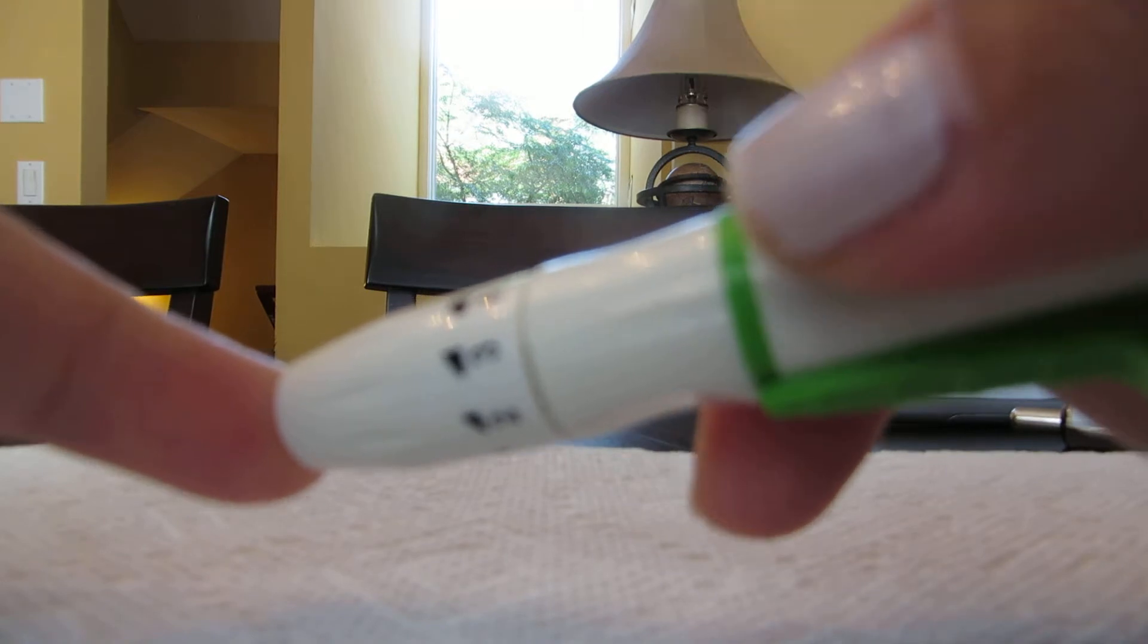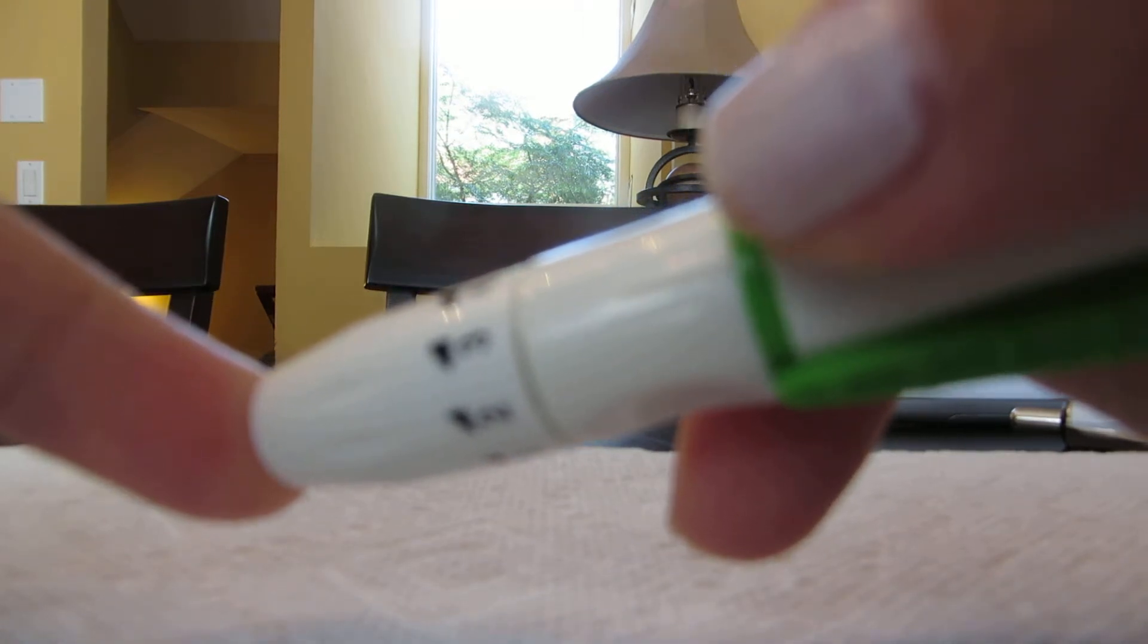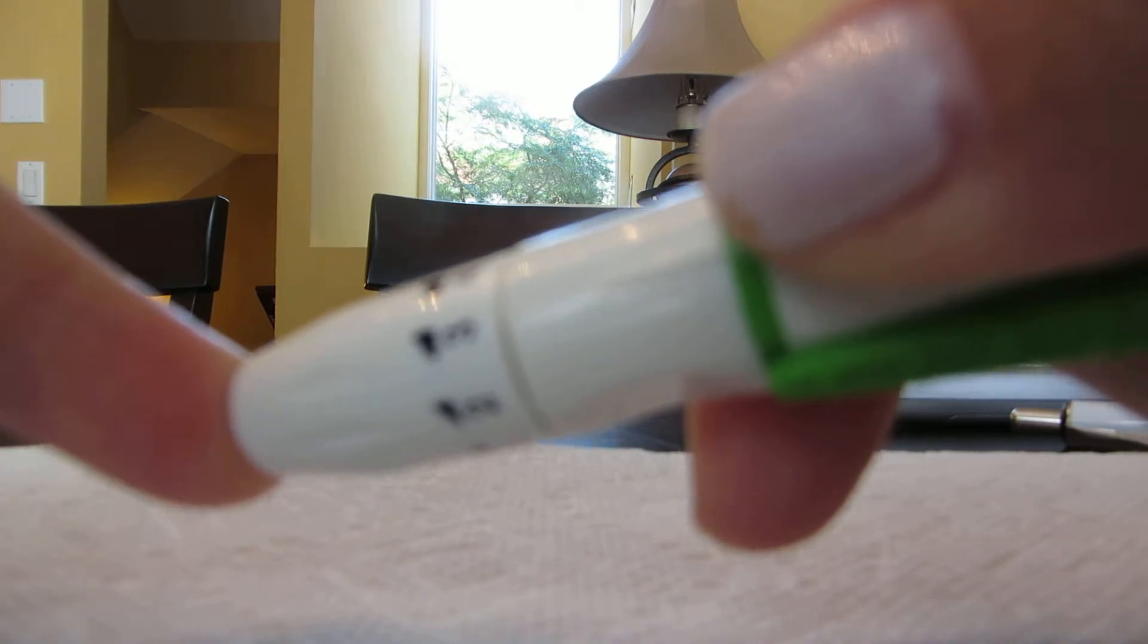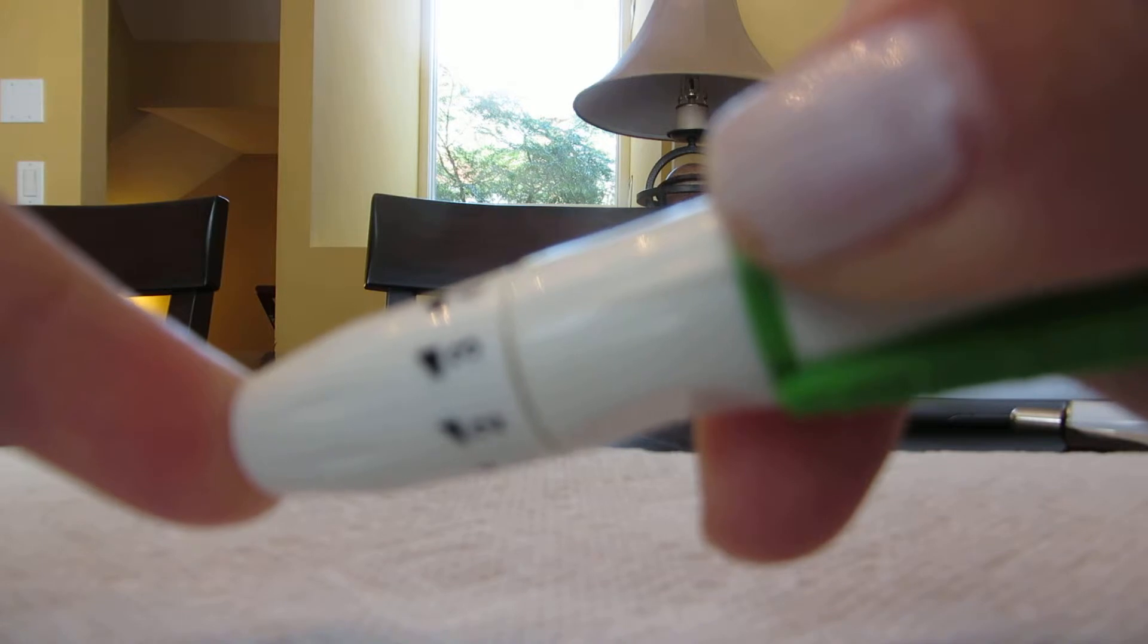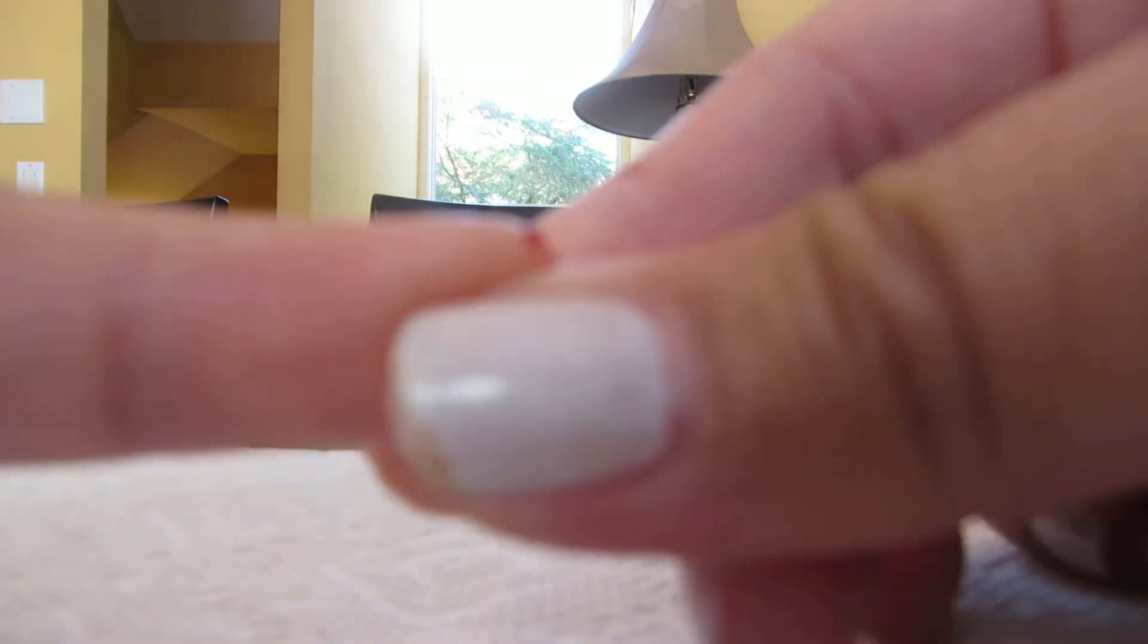Press firmly onto the finger, don't be scared, and press the button. Now the needle has gone into your finger. You don't really feel anything after. See, the blood is coming out. We do a little squeeze for a nice drop of blood.